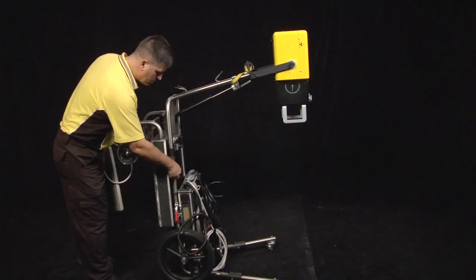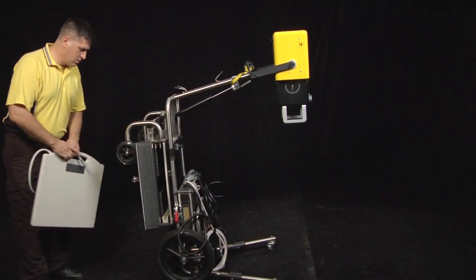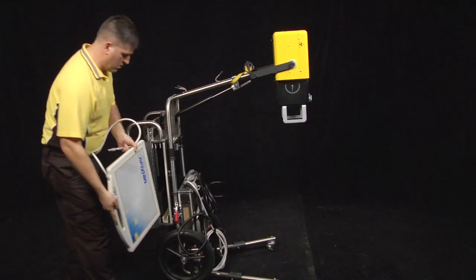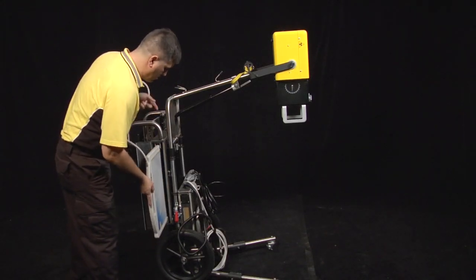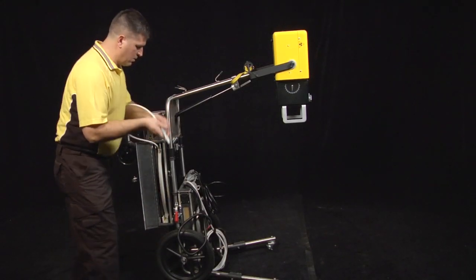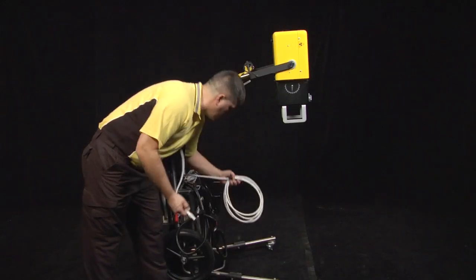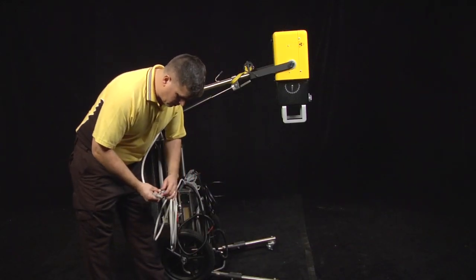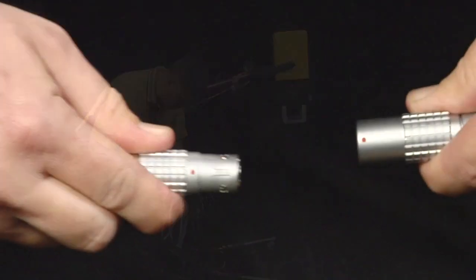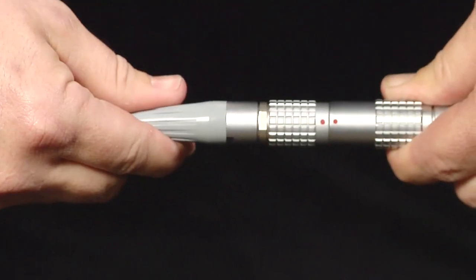Secure IP plate in storage tower with handle out and cord exiting out of the top when not in use. Connect the Varian IP plate using the quick connect panel connection cord by aligning the two red dots on quick connect fitting and lock into place.